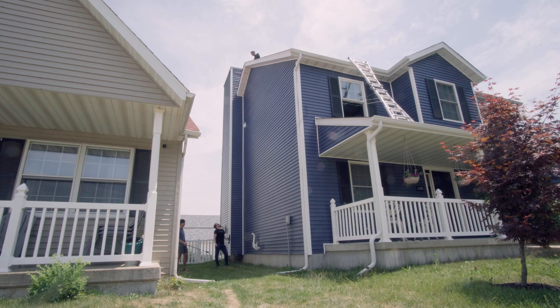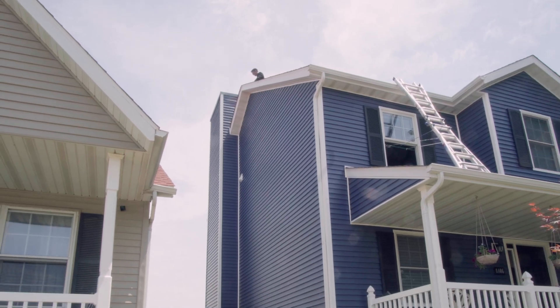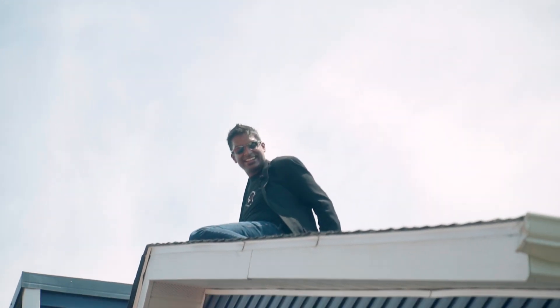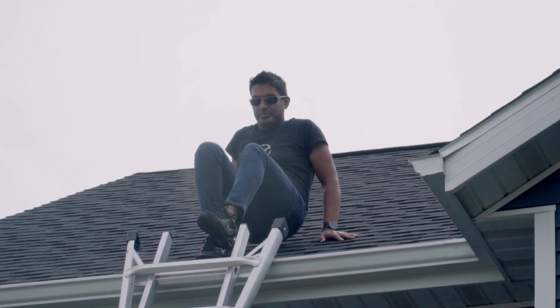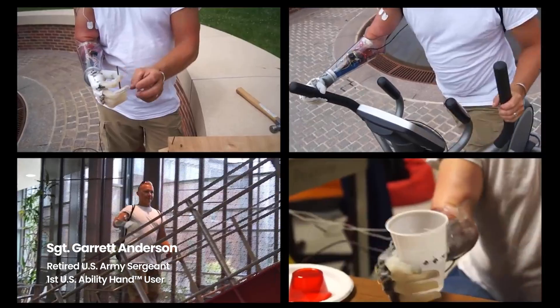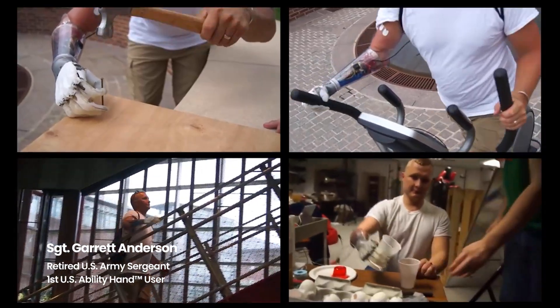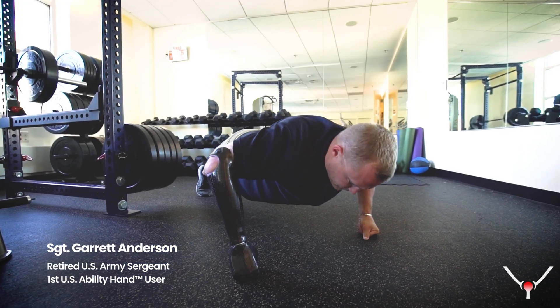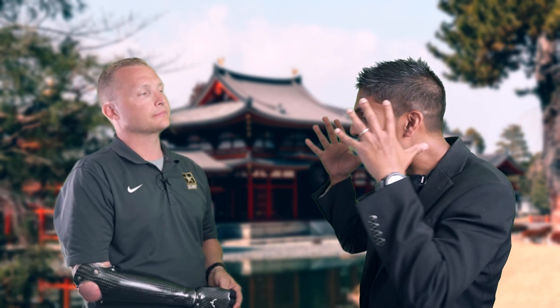You think we're ready for Garrett? I think so, let's do it! Retired U.S. Army Sergeant Garrett Anderson has tried almost every prototype of the ability hand, helping us improve each one. Now, to put it to the test, we're going to bring out the martial artist in him. So Garrett, you have been our first user ever in the U.S. of the ability hand. Tell us — how did you lose your hand? How did you come to start working with us?